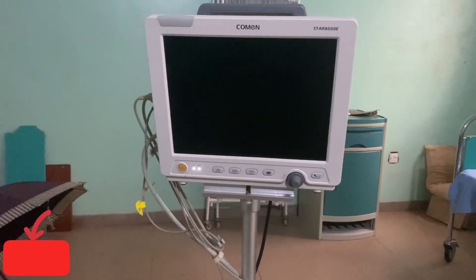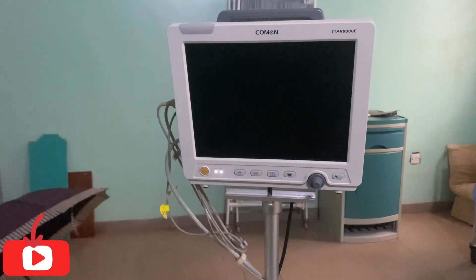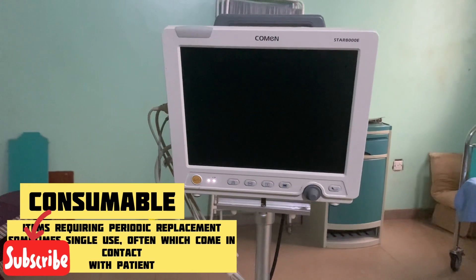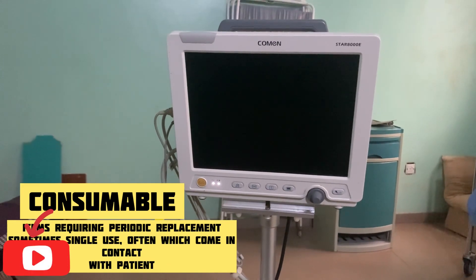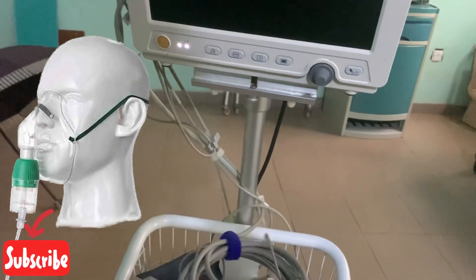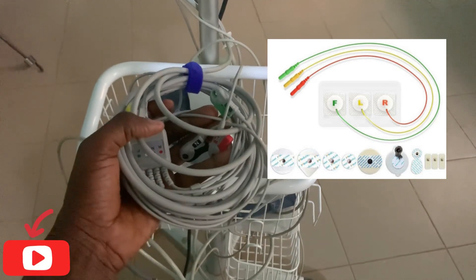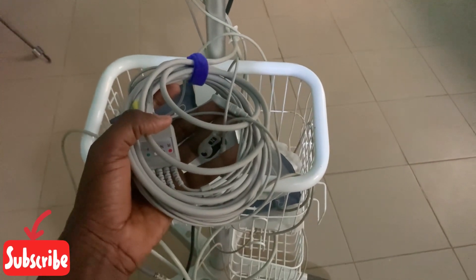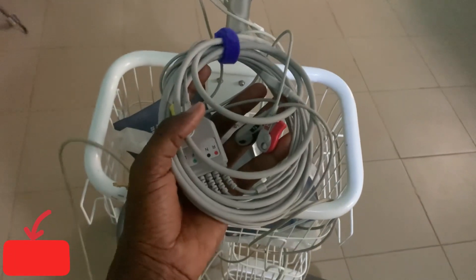Today it is very important for paramedic technicians to understand the difference between consumables, accessories, and parts. Consumables are those items that are used on patients which are often changed after every patient — for example, the nose mask. ECG electrodes are placed on ECG leads and are discarded after contact with each patient, making them consumables.